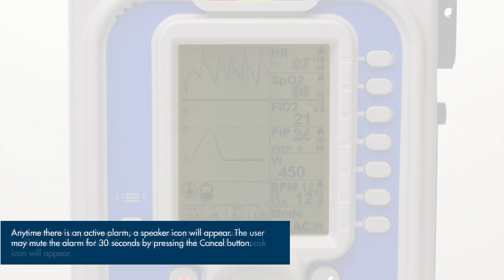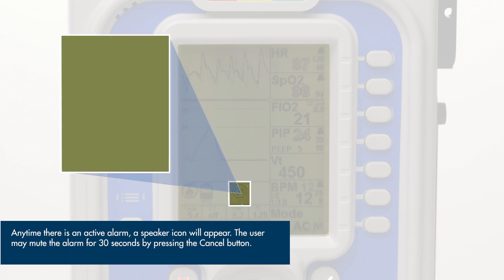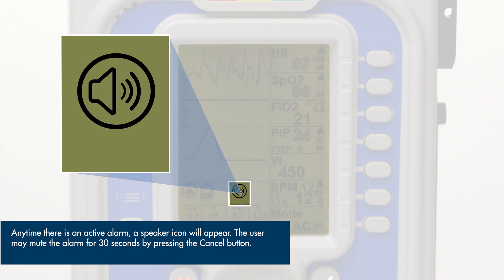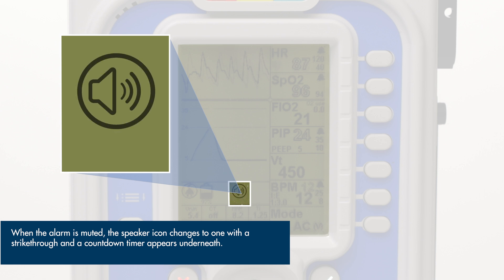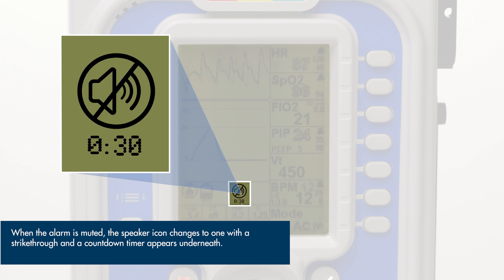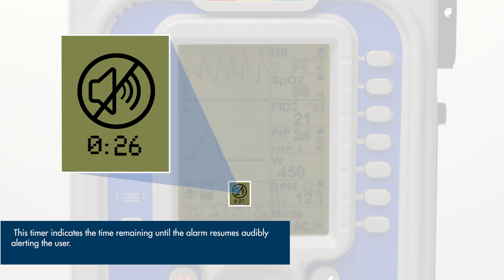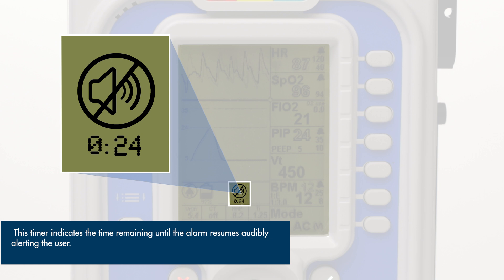Anytime there is an active alarm, a speaker icon will appear. The user may mute the alarm for 30 seconds by pressing the cancel button. When the alarm is muted, the speaker icon changes to one with a strikethrough and a countdown timer appears underneath. This timer indicates the time remaining until the alarm resumes audibly alerting the user.